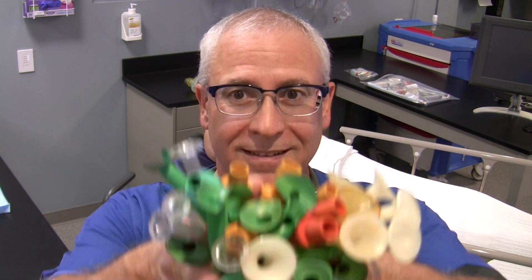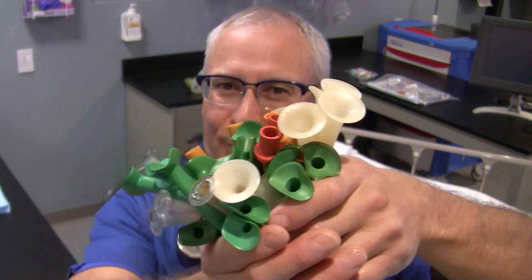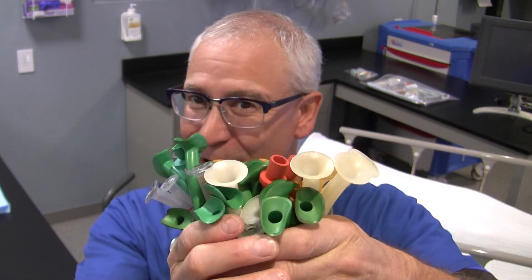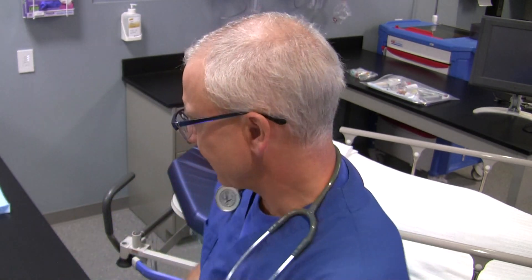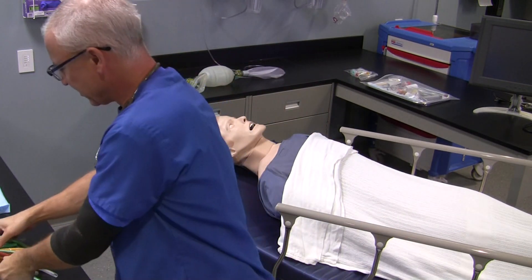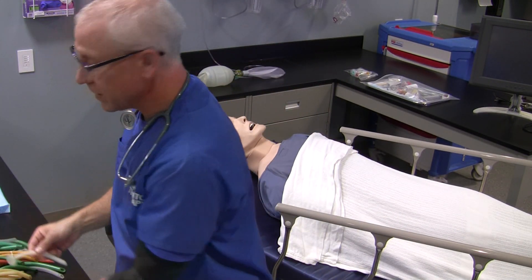Hi, I'm George and I'm a registered respiratory therapist coming to you today from Alberta, Canada. What I'd like to show you today are these. It's not a floral bouquet for your significant other or grandma or grandpa. These are nasopharyngeal airways, also commonly called NPAs — NPA stands for nasopharyngeal airway.